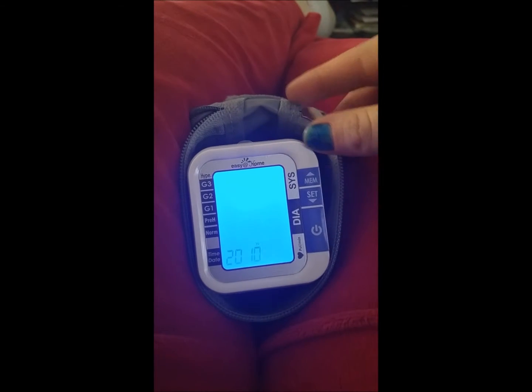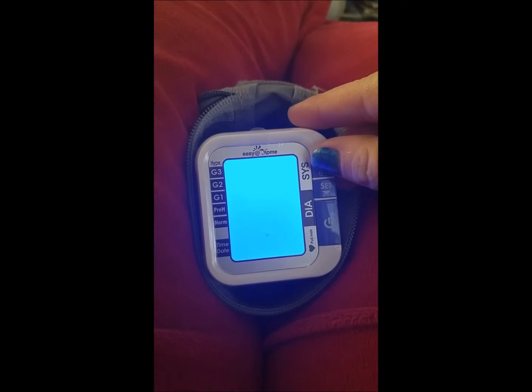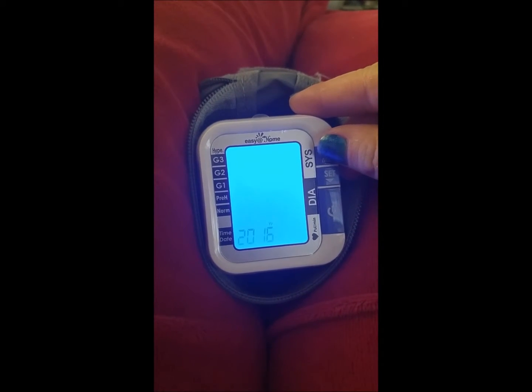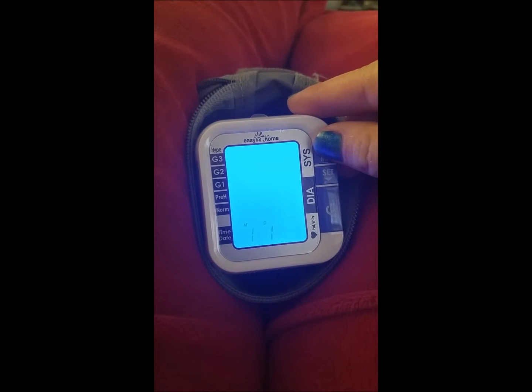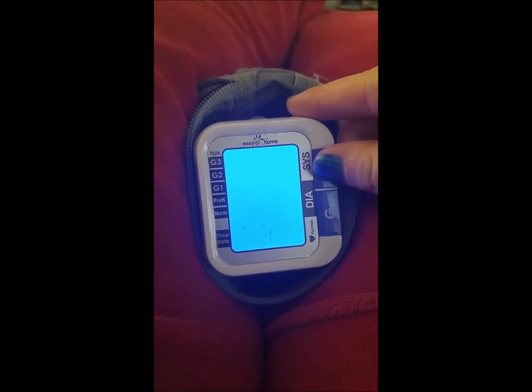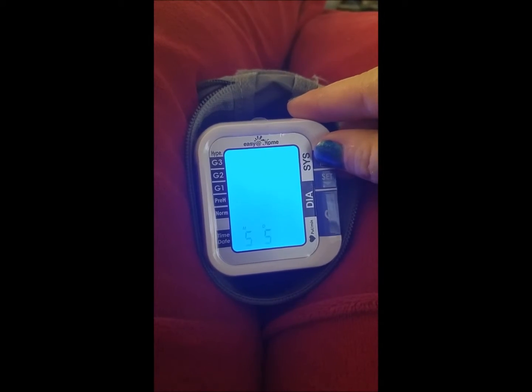When we put the batteries in, it is flashing — this is for the year. You're going to want to change the year. We're in 2016, and then you're going to hit the set button, and then the month. Right now we are in May, and then today's date is the 20th.